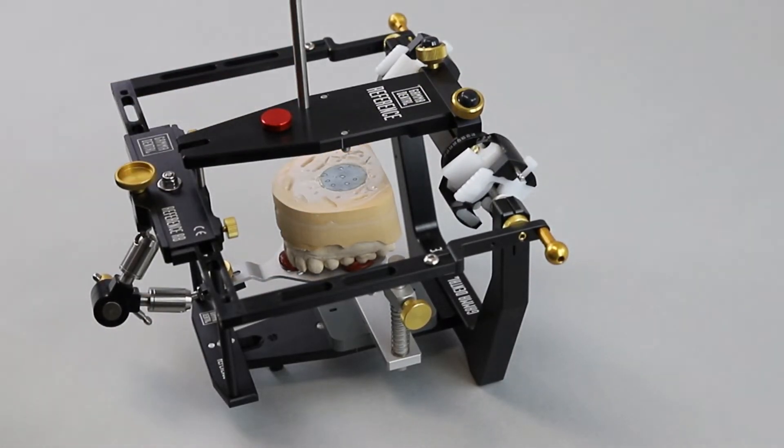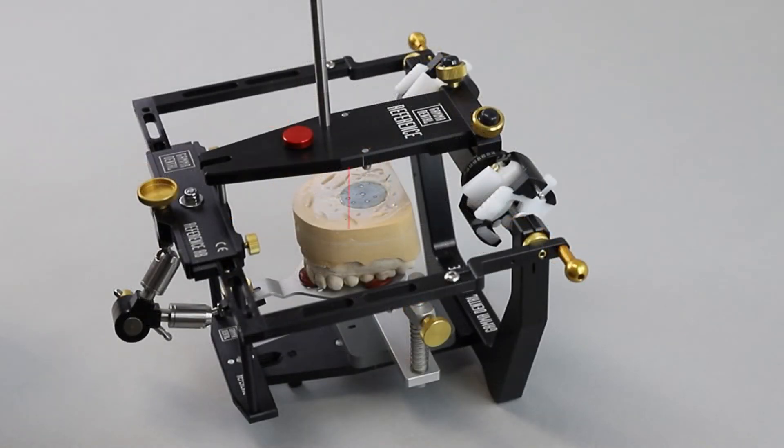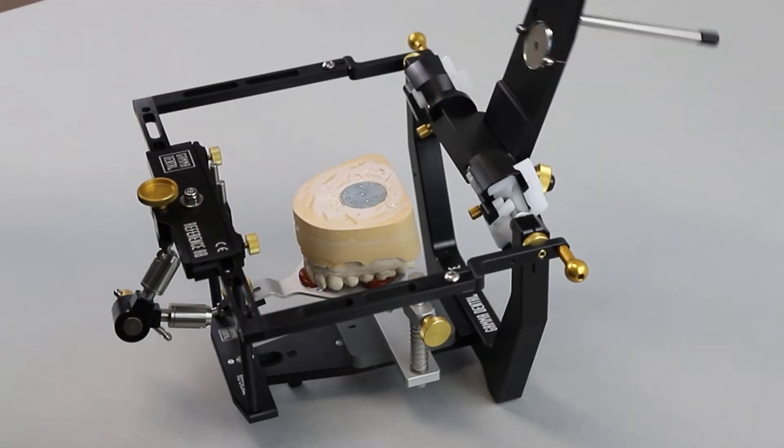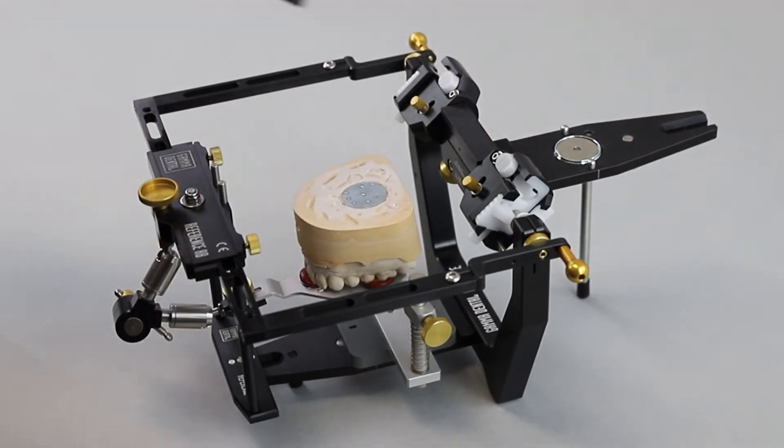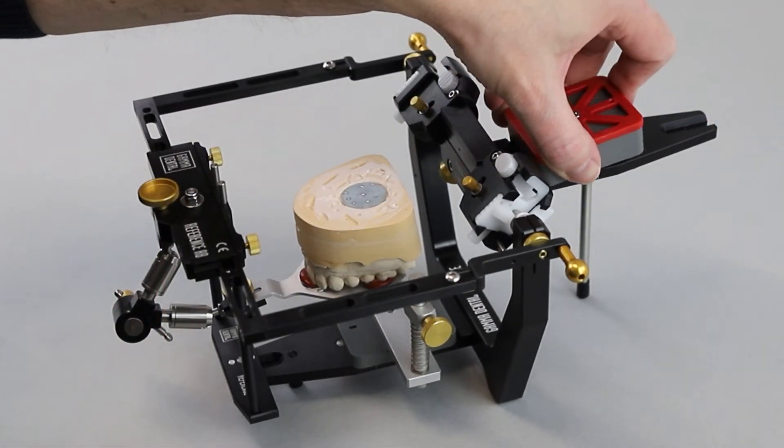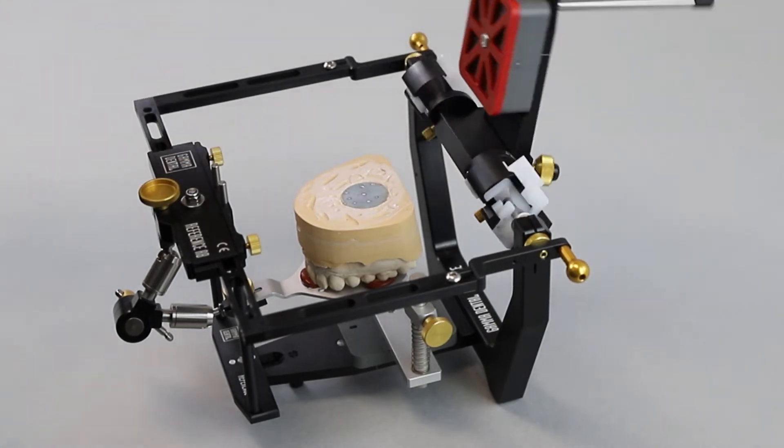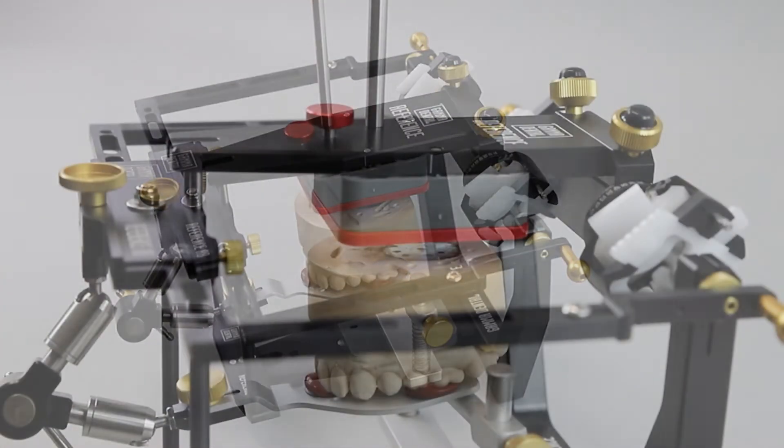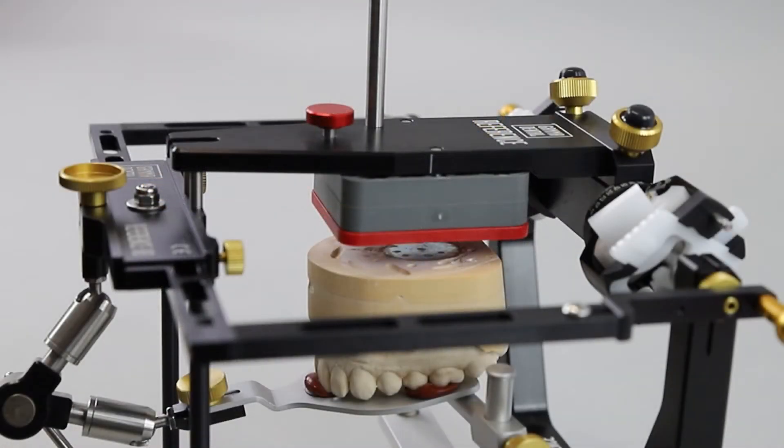Analyze the distance between the upper section and the model. The distance block which best fills the spatial requirements can now be chosen. Make sure that there is a thin but even space between the cast and the mounting plate.